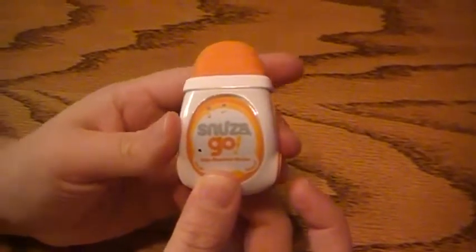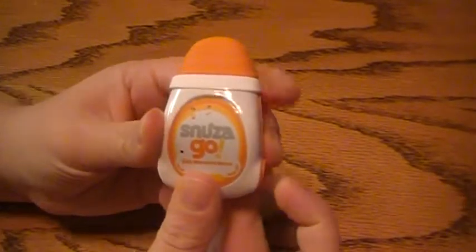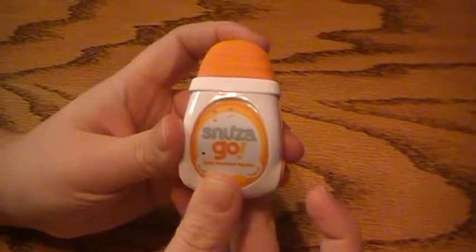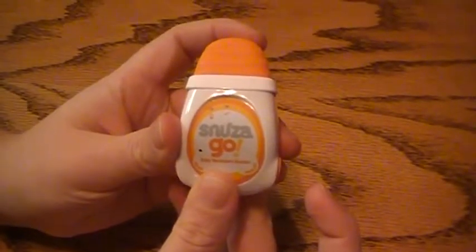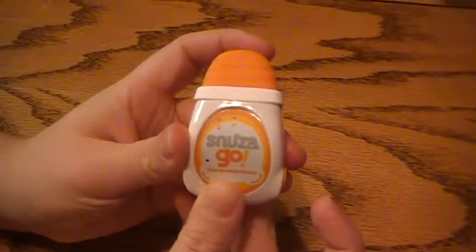If you want to hear the Audible Tick function, you just use your Mode Off button and push it once, and it puts it on the lowest setting. It's very barely audible when it detects motion — the light flashes and it has a very soft tick.